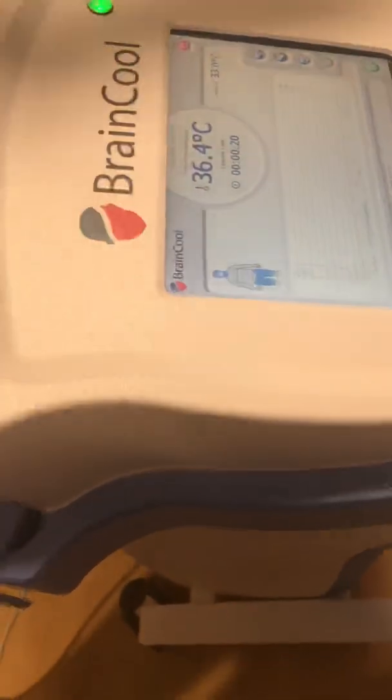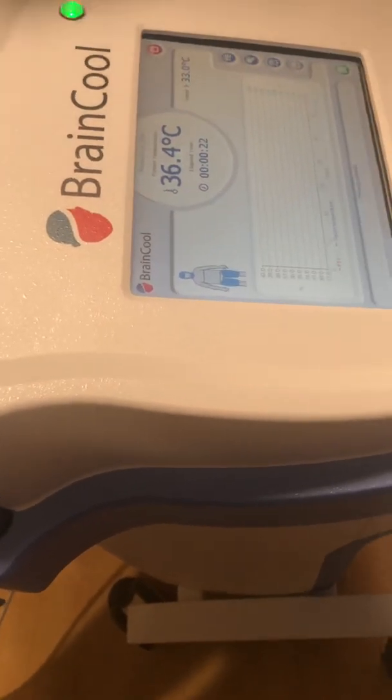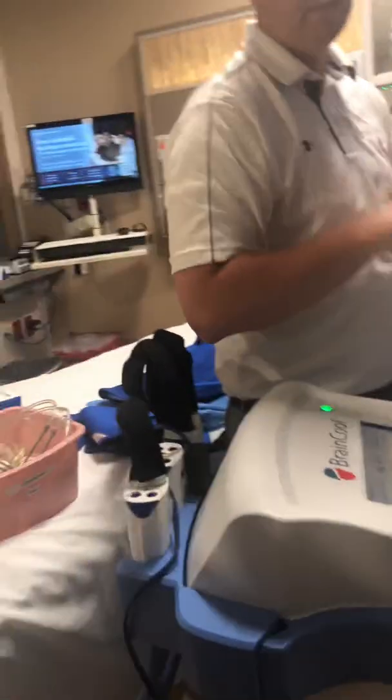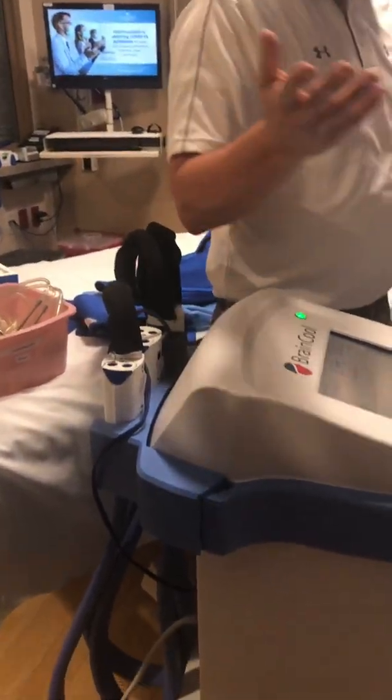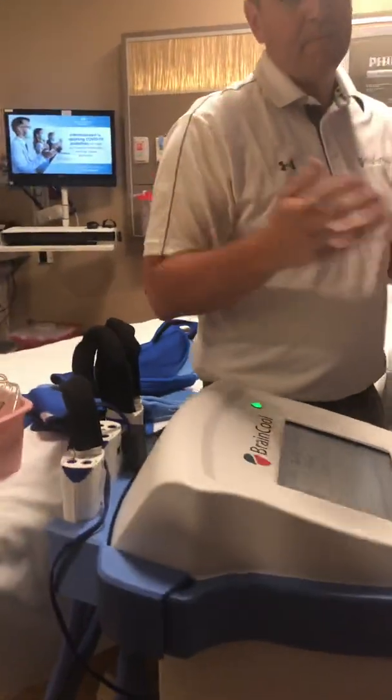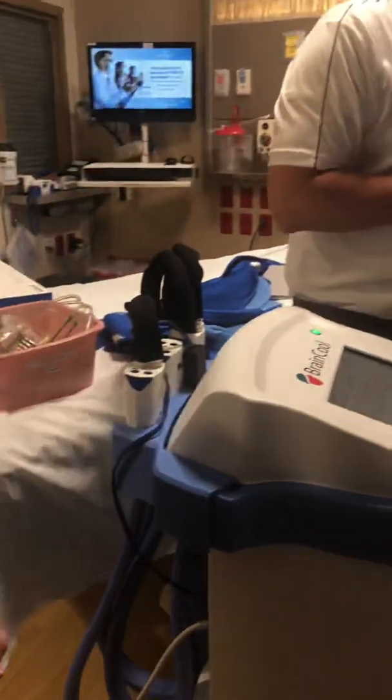The machine can be turned off and detached from your patient for up to 3 hours. When you hook it back up, you'll get, do you want to continue on the last patient? Continue treatment for the last patient. Okay. And depending on what you want to do, yes or no. If it's more than 3 hours, you have to start over. Yeah. How do you stop? You just push the pause button.